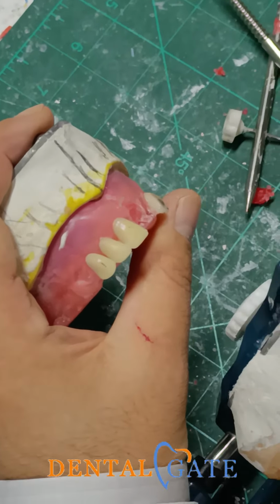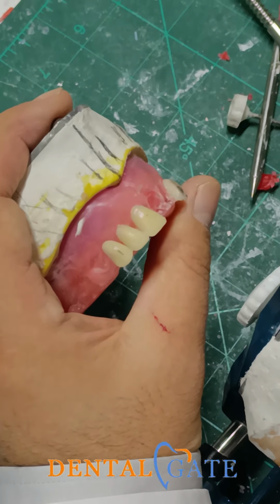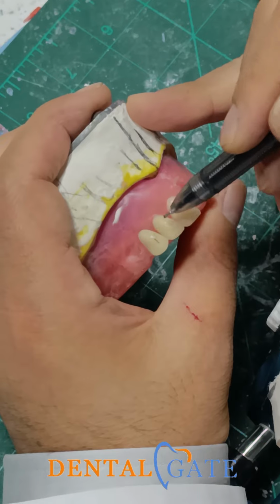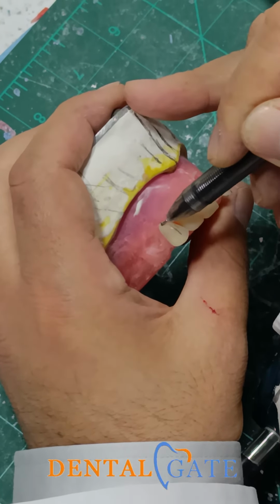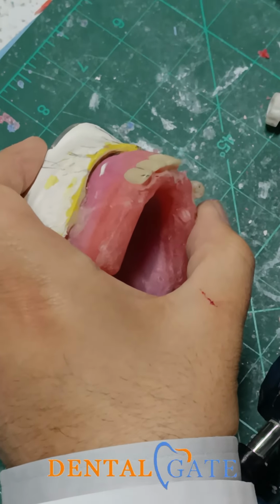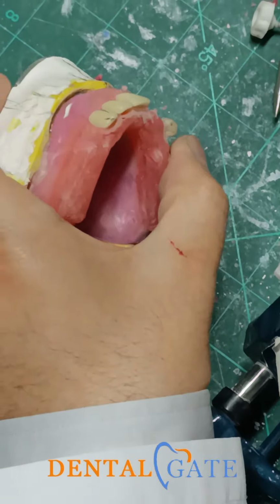When you make a build-up, a veneer, or an arrangement of teeth, the canine is a very critical position to make a good proportion between the anterior and the posterior. We have two surfaces: one surface for the anterior, and we have the labial ridge inclined toward the distal. On the other side, it will provide the starting aspect, the initial aspect, for the posterior region.